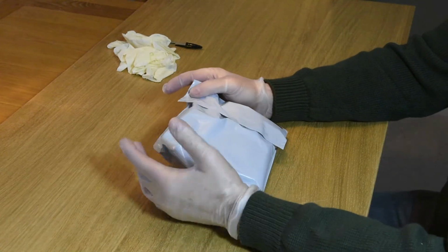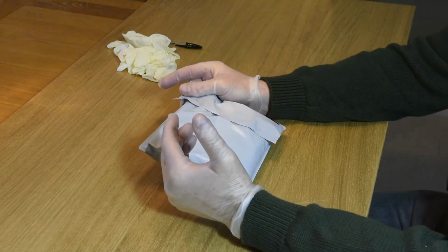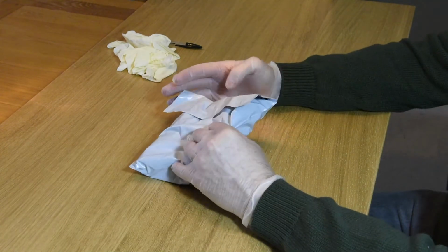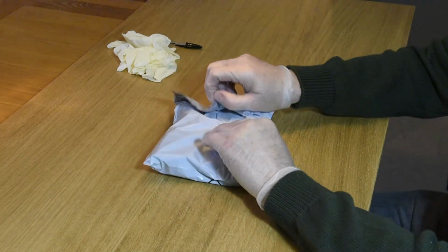So our employee has failed the first line saliva test, and we now need to send a sample off to the laboratory so that they can run what's called a chain of custody test. So this is a chain of custody test kit, so I'm just going to open the bag and talk you through the components.